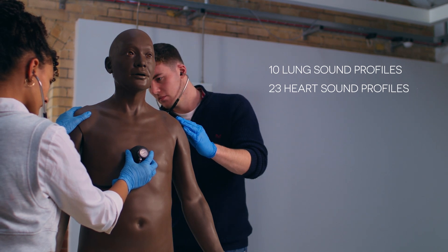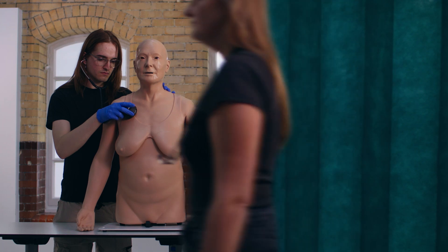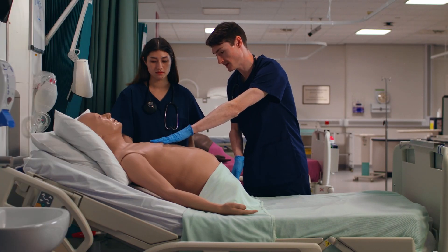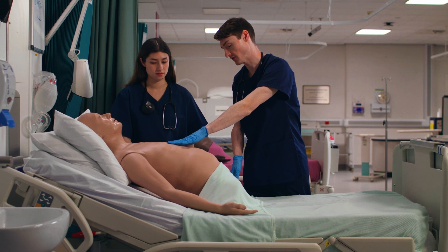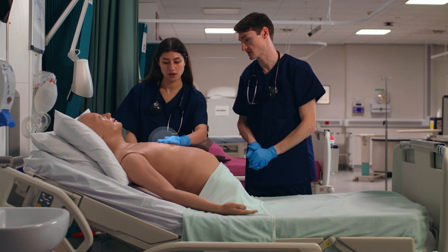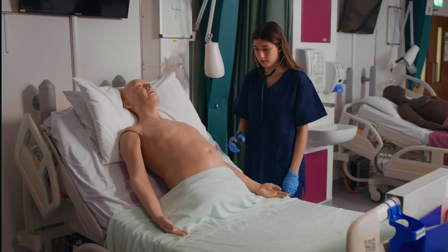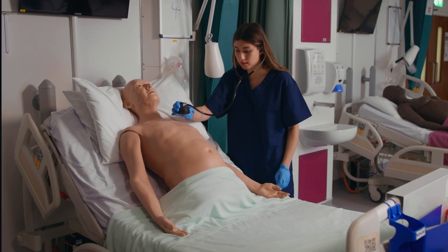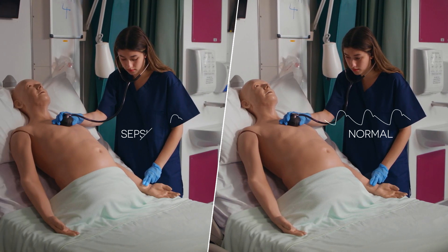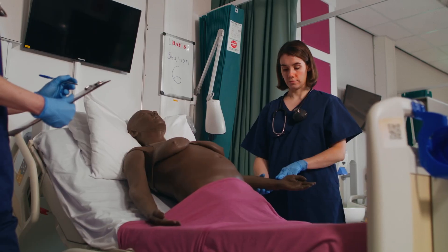These building blocks give a solid understanding before advancing to more complex scenarios. In the clinical section, users can select and play any of the 31 realistic cases ranging from common to more infrequent conditions. The patent-pending technology allows the synchronization of pulses, lung, heart, and mouth sounds with chest movement.